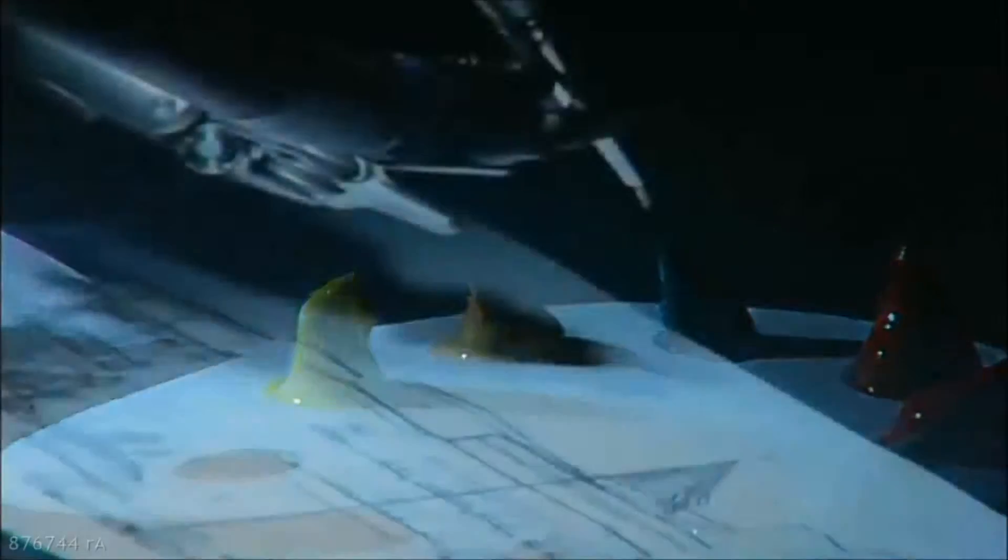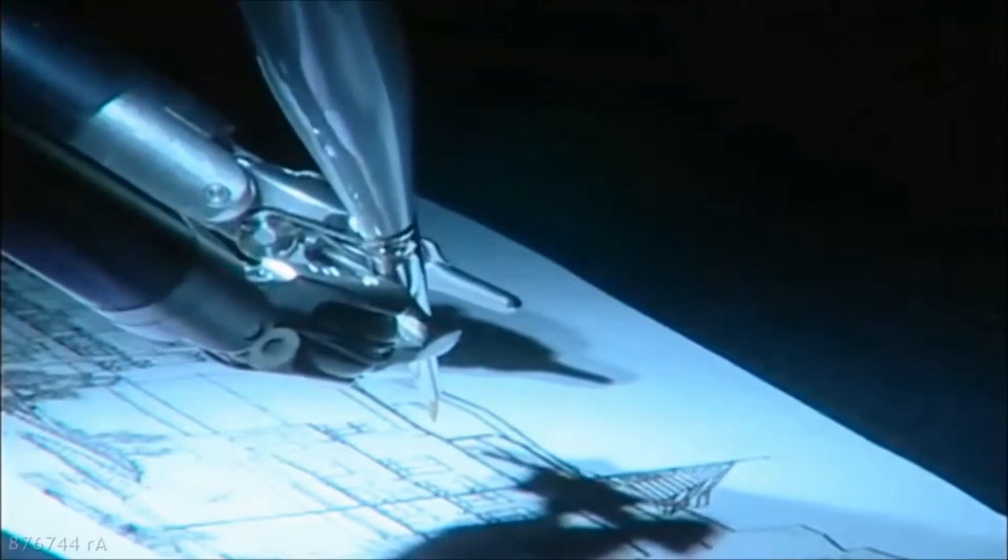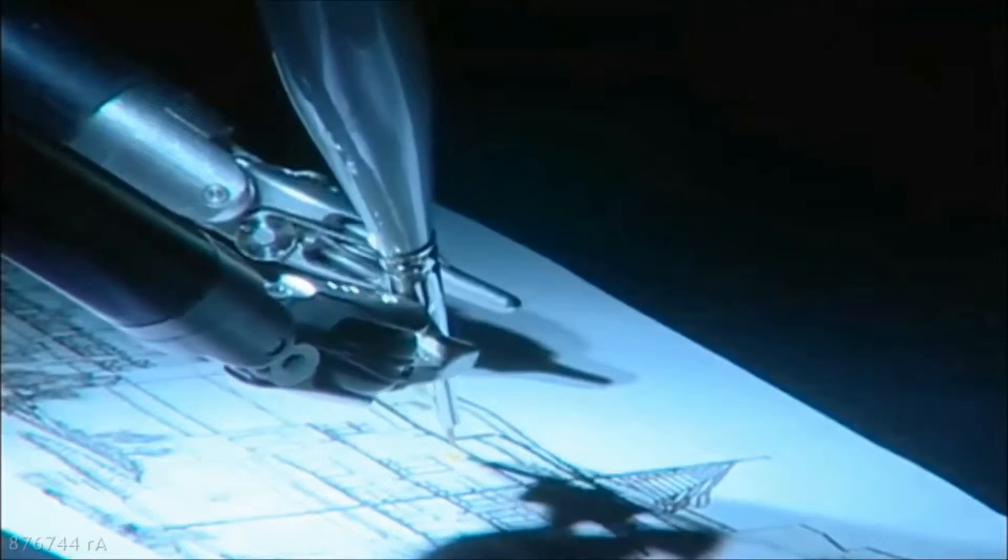To show you just how dynamic and precise the system is, I'm using it today to paint a picture of Doctors' Hospital.